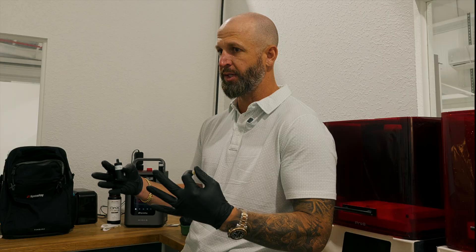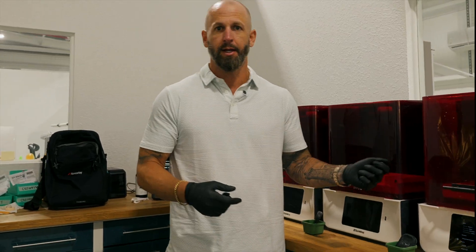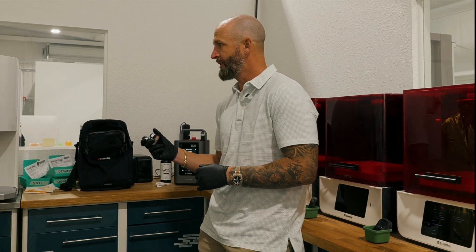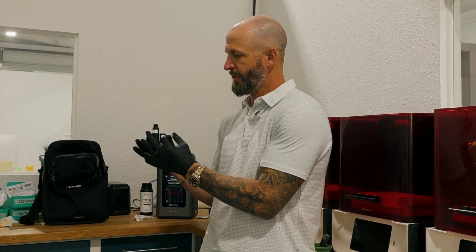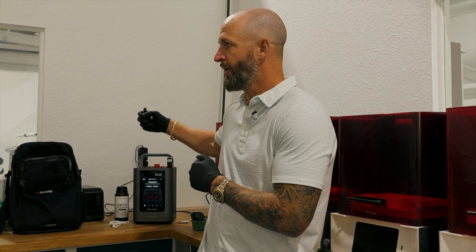The print time is fantastic, and the ease of use and cleanliness is great. When I travel and my team sets up, in the past you'd heat up and pour in the resin, and if we're only doing an arch of temps we'd then have to pack everything up. The nice thing about the pods — I really look forward to the future of pressing through print. This compact pod-and-printer combination will be so convenient for the chair-side team to take anywhere.